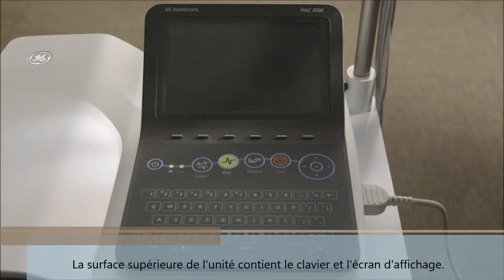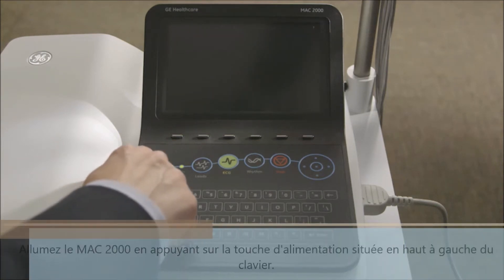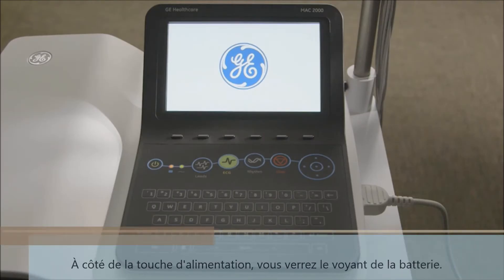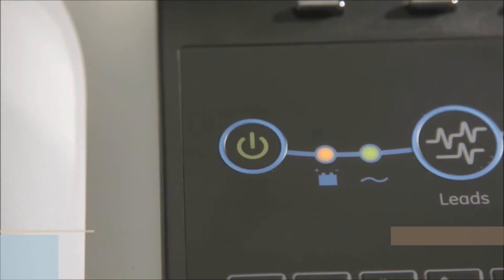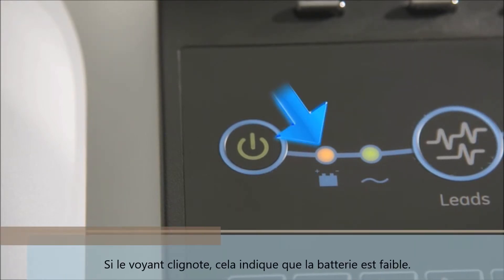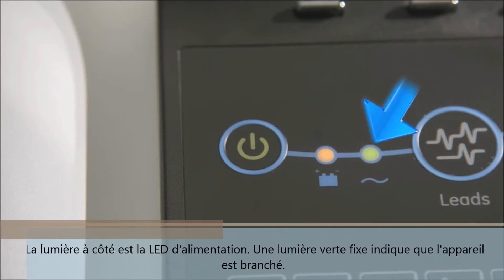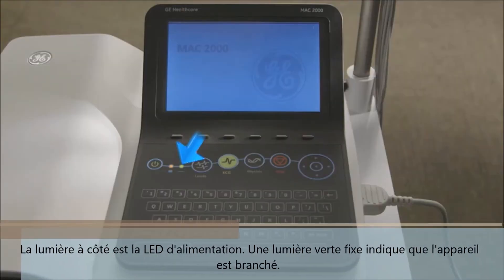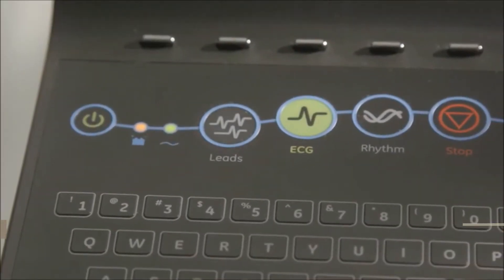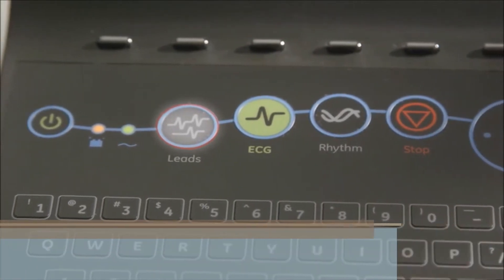The top surface of the unit contains the keyboard and display screen. Turn the MAC-2000 on by pressing the power key on the upper left side of the keyboard. Next to the power key you will see the battery LED. A solid amber light means the battery is charging; if the light is flashing it indicates the battery is low. The next light is the power LED — a solid green light indicates the unit is plugged in and receiving power. The leads key enables you to scroll through the leads and select the display formats for the lead sequence.